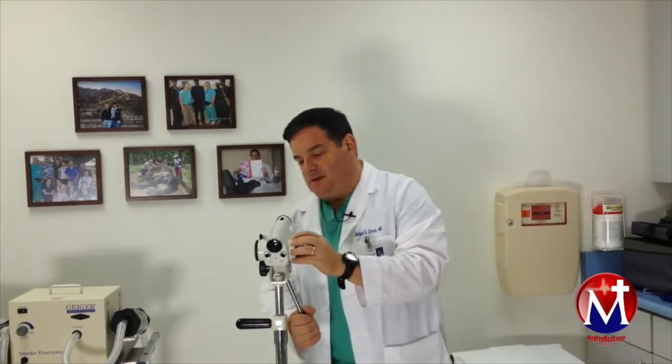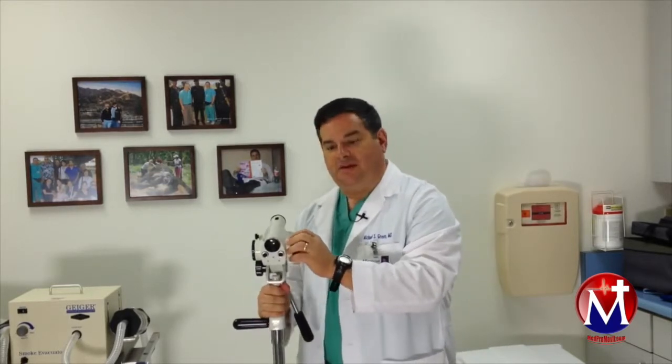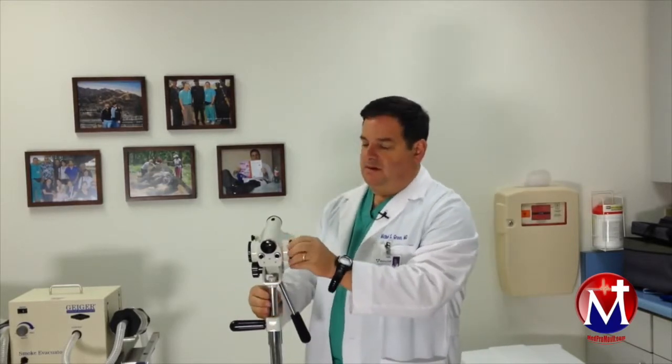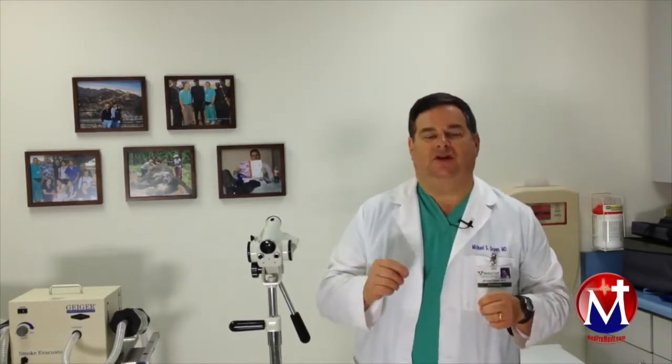This has a little focusing knob here — we move it back and forth. It also goes up and down, and we can adjust the magnification. The doctor will be manipulating these things to look at the cervix, which really magnifies it to allow us to see patterns — particular cellular patterns and blood vessel patterns — that help us look for anything abnormal.